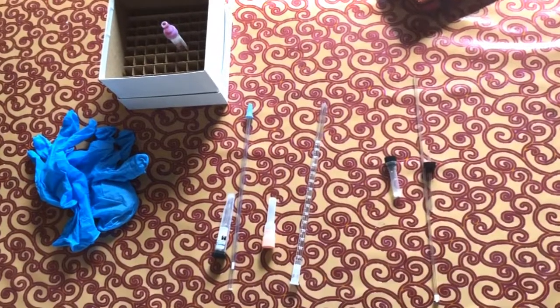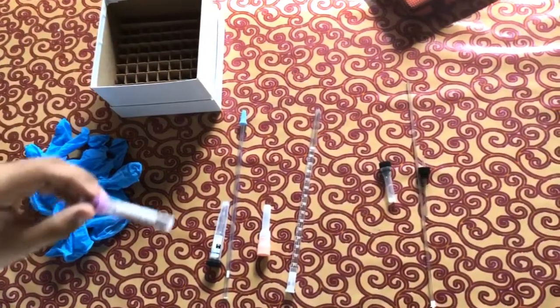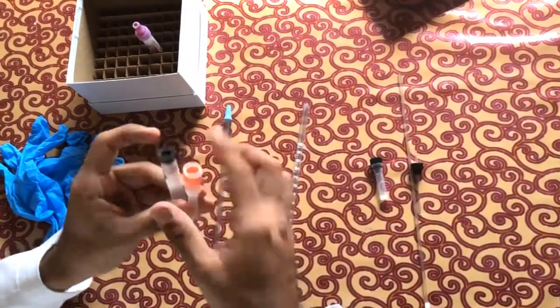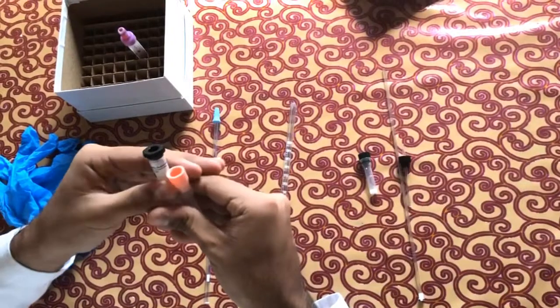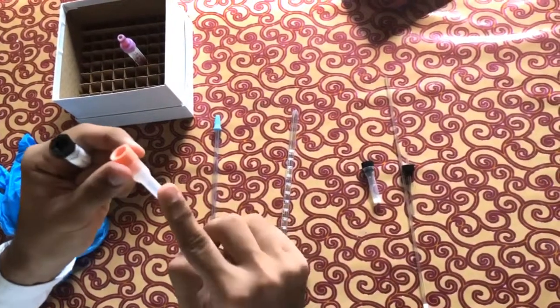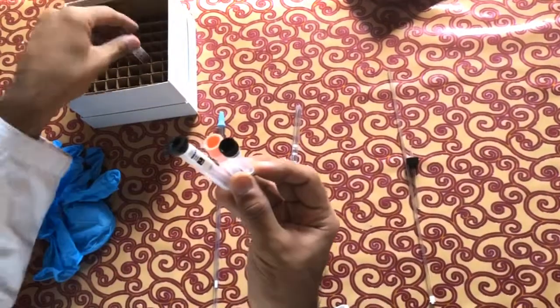The materials required in performing the ESR test are an EDTA sample tube, because we are using the tubes for the ESR which needs to be transferred from an EDTA tube, and this contains the sodium citrate inside, which is the anticoagulant also, including this one and this one. So all these three tubes are used for the transfer.